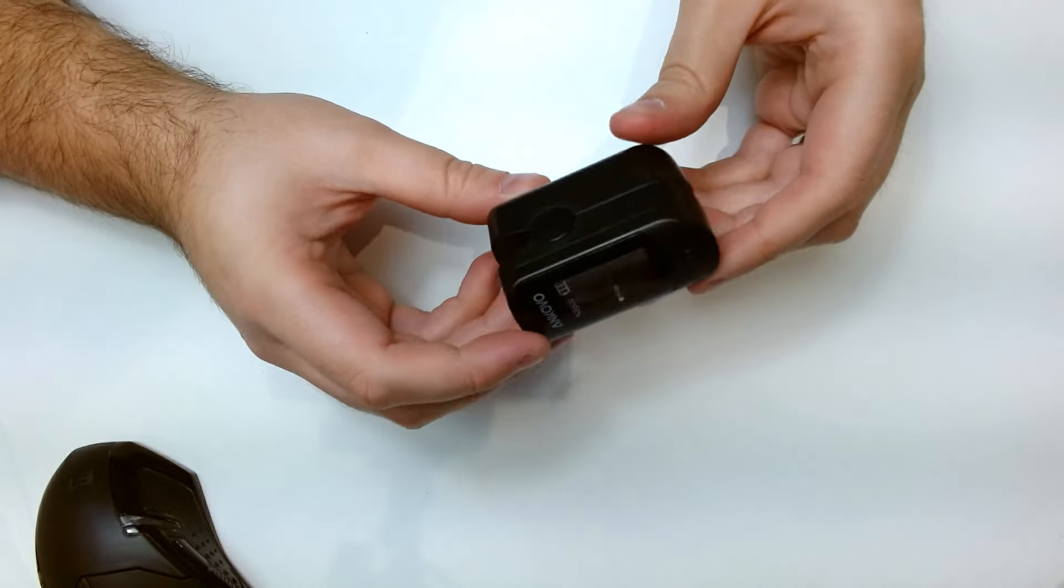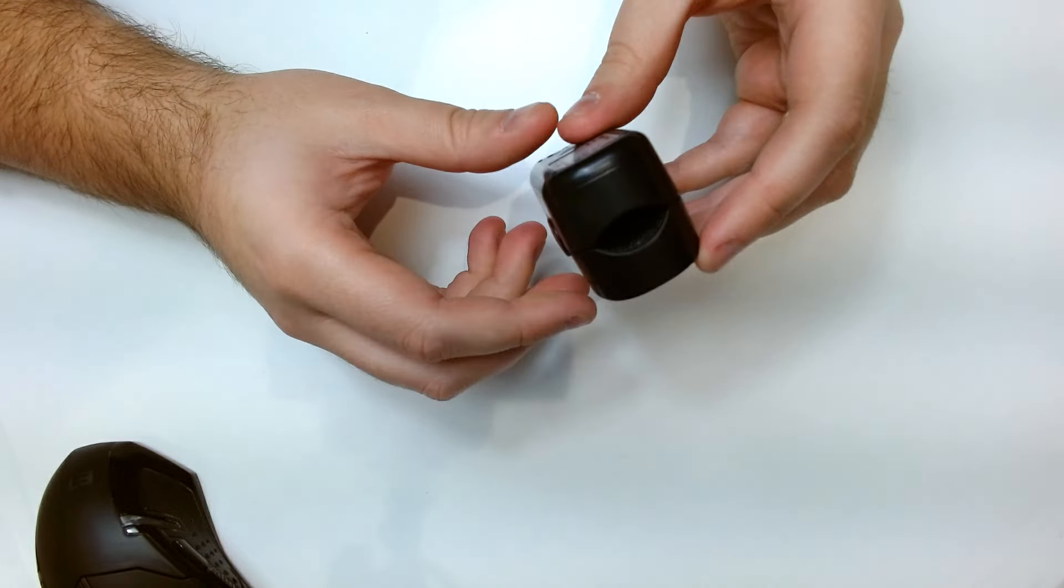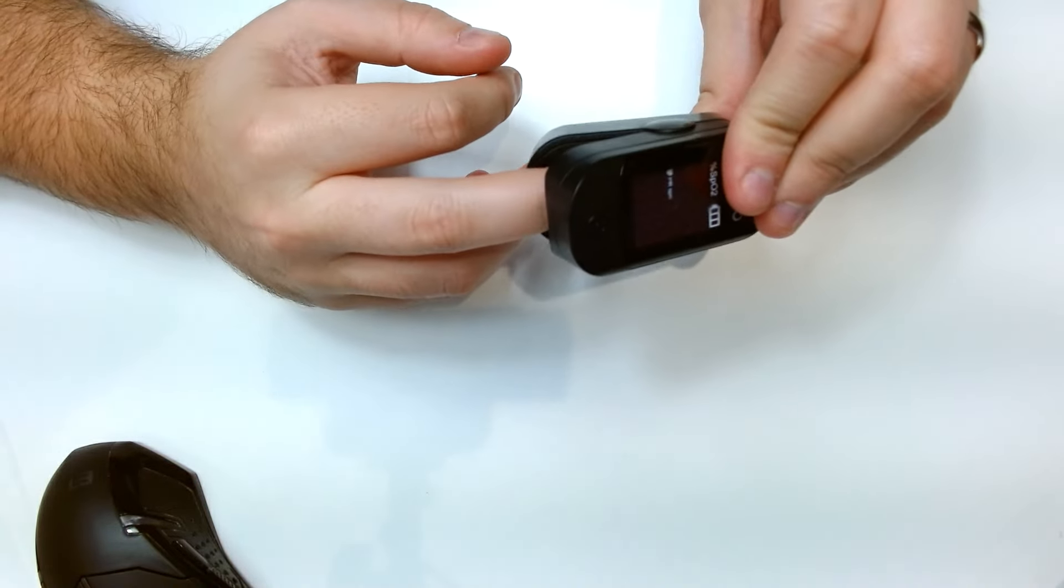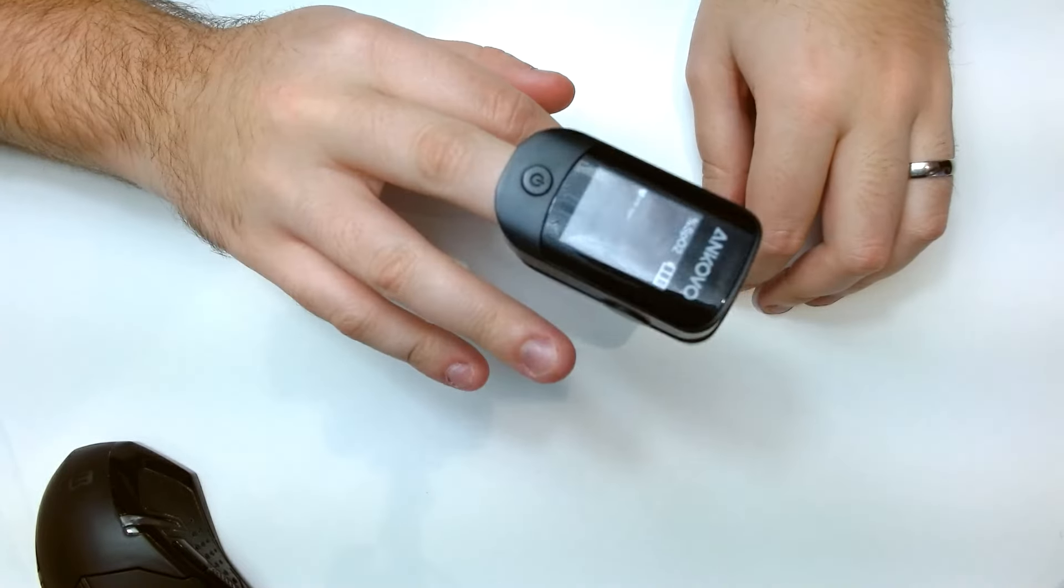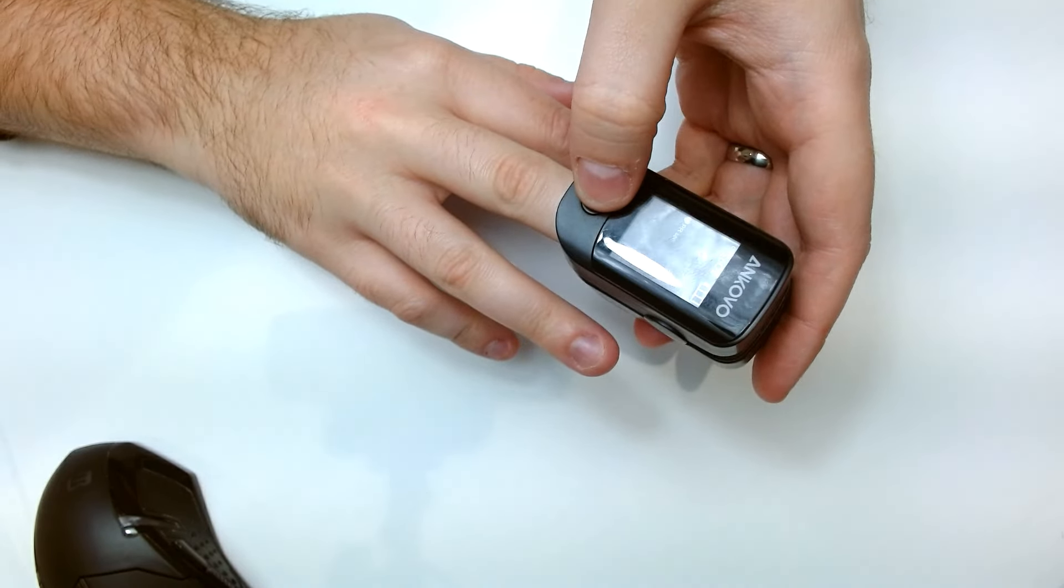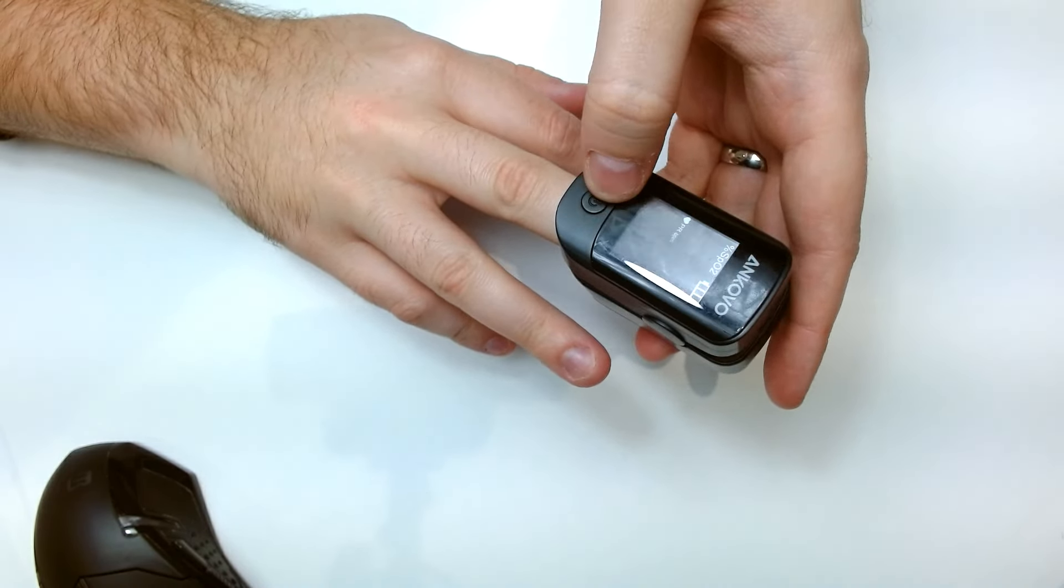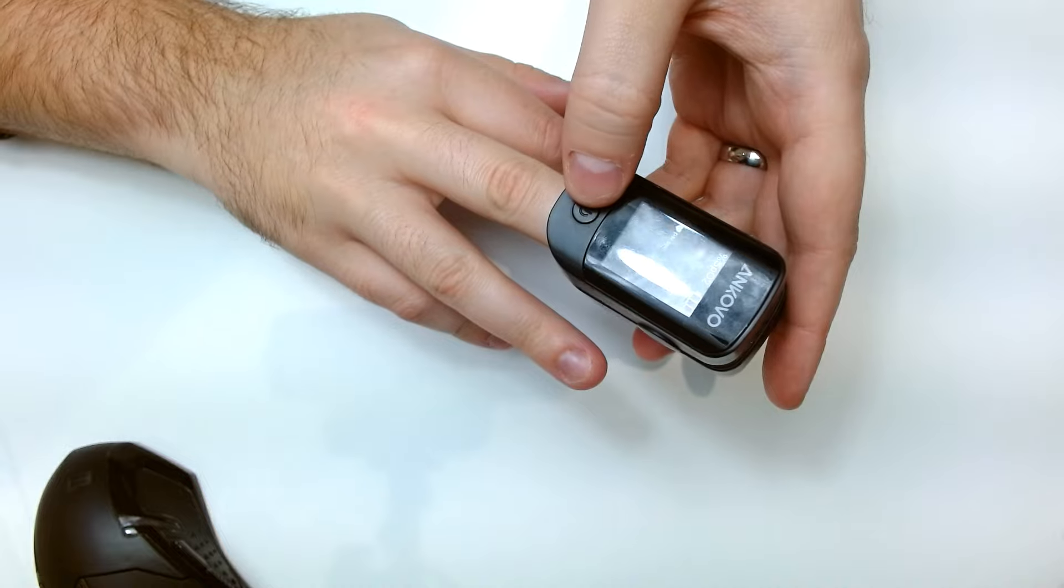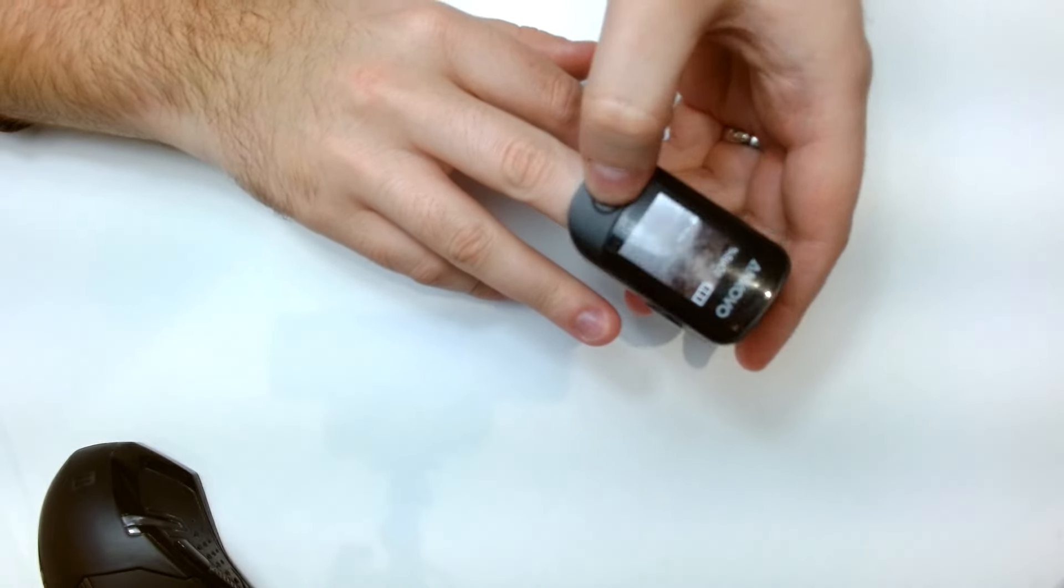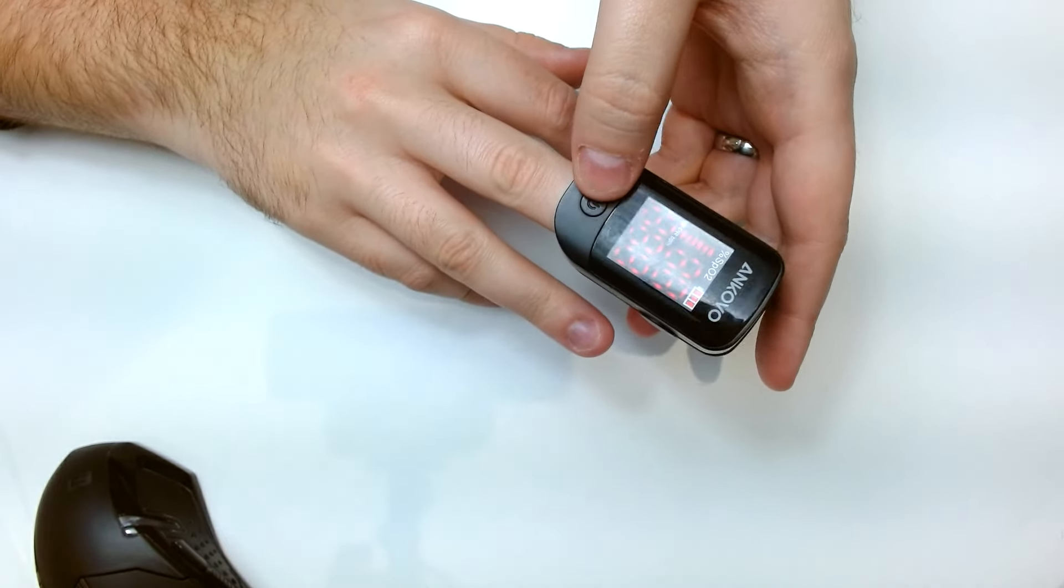It's a little gadget that you place onto your finger like so, any finger. You then press the little button which is displayed right here and then click it.